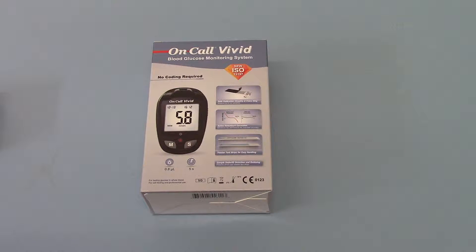It also has active hematocrit correction. Hematocrit correction is a technology built into these to correct the reading of glucose for varying hematocrit. Hematocrit refers to the thickness of the blood — the number of red cells and other cells per mil. This does have an effect on glucose levels and the ability of meters to give accurate readings. By building a correction technology into these meters, it increases the overall accuracy of the glucose readings obtained using this metering system.